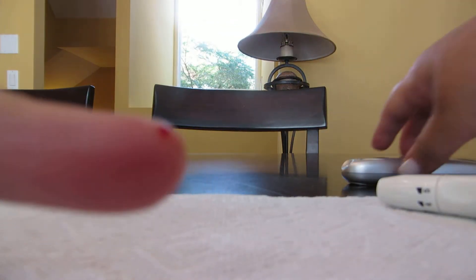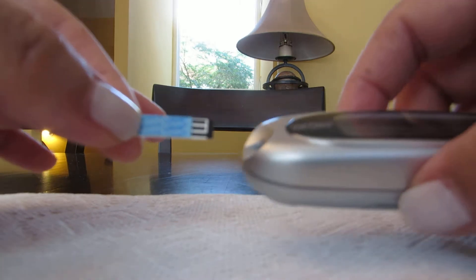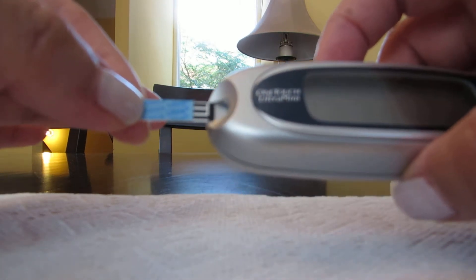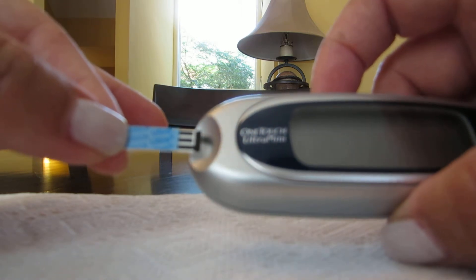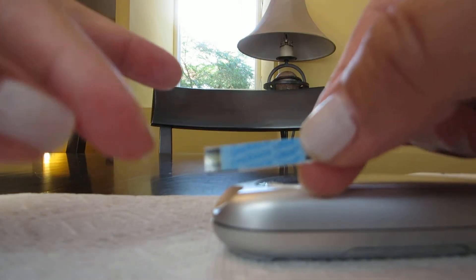Sometimes your finger won't want to give the blood out. This is when you put your monitor together because it's timed, and if you don't get the blood out in proper time, the monitor can time out.